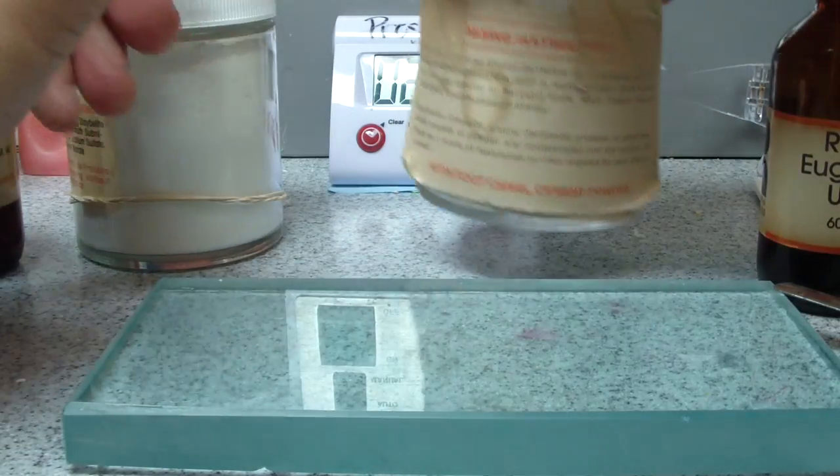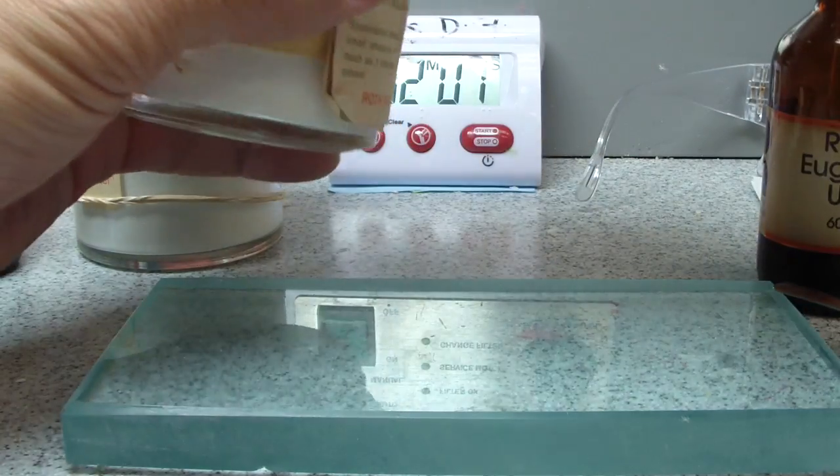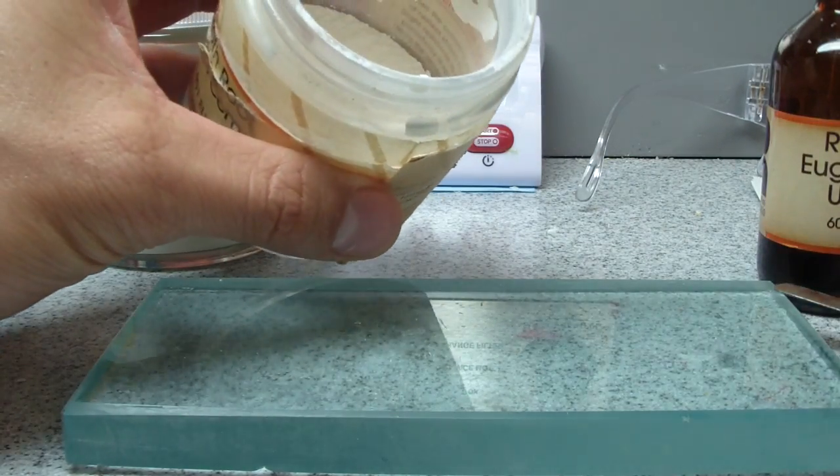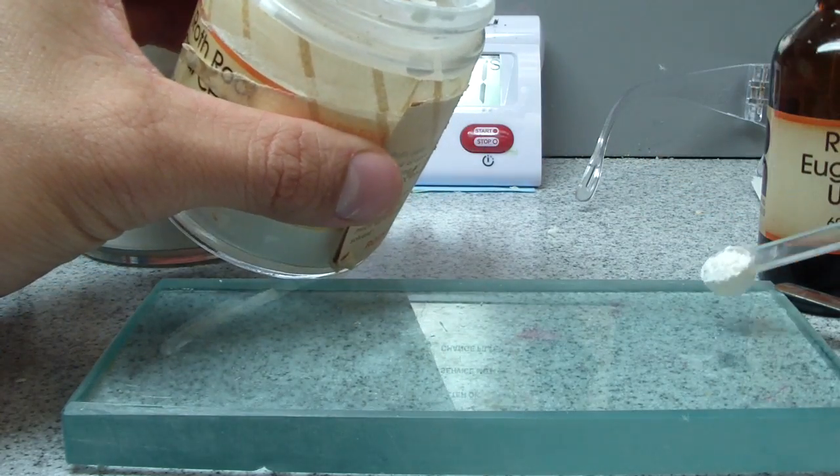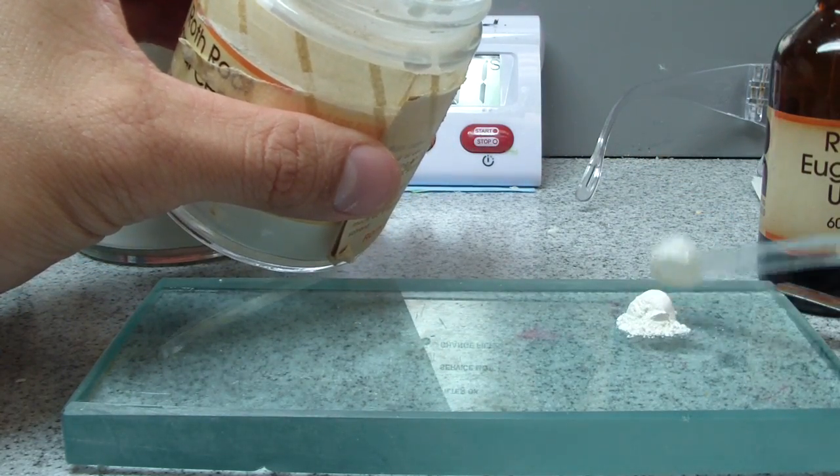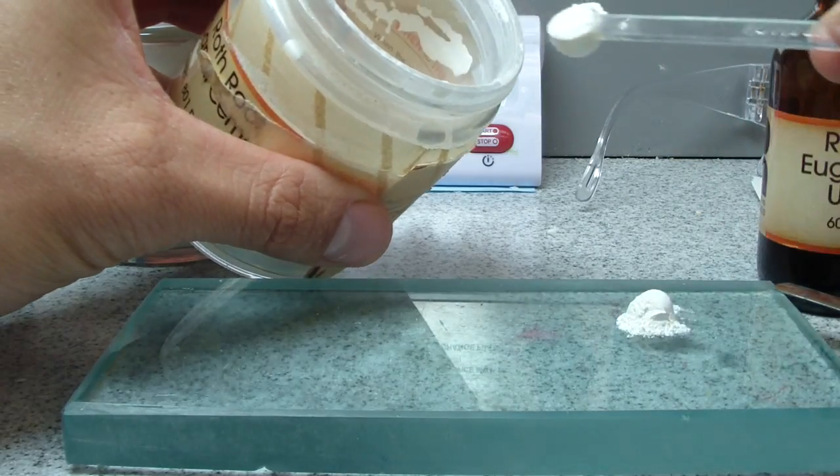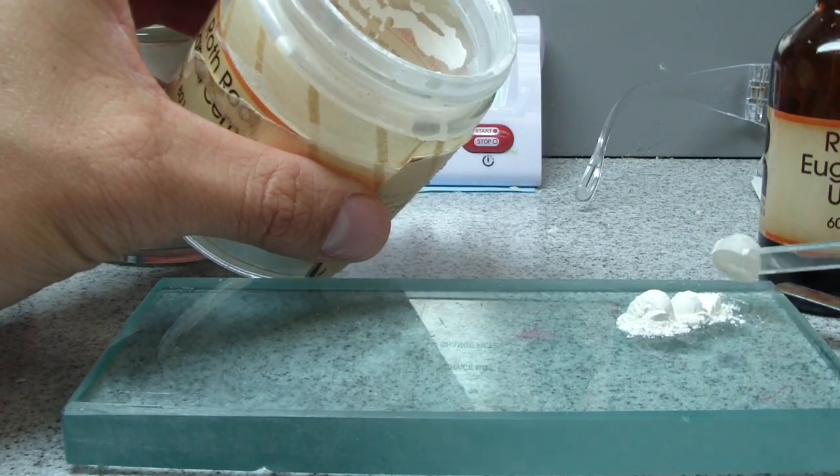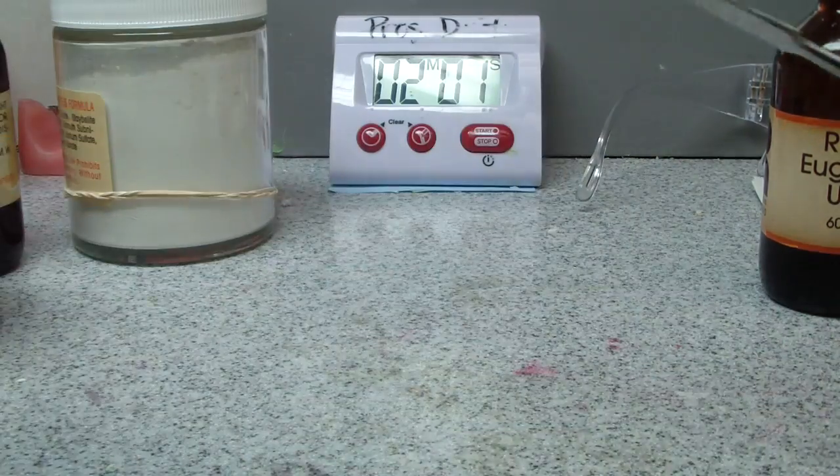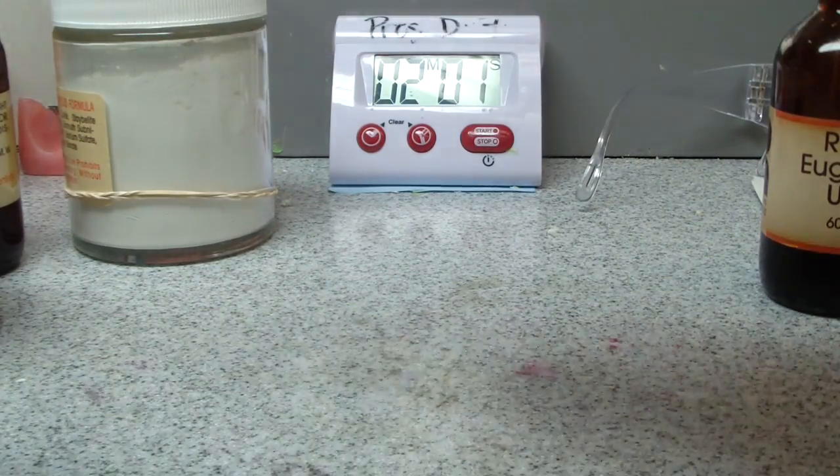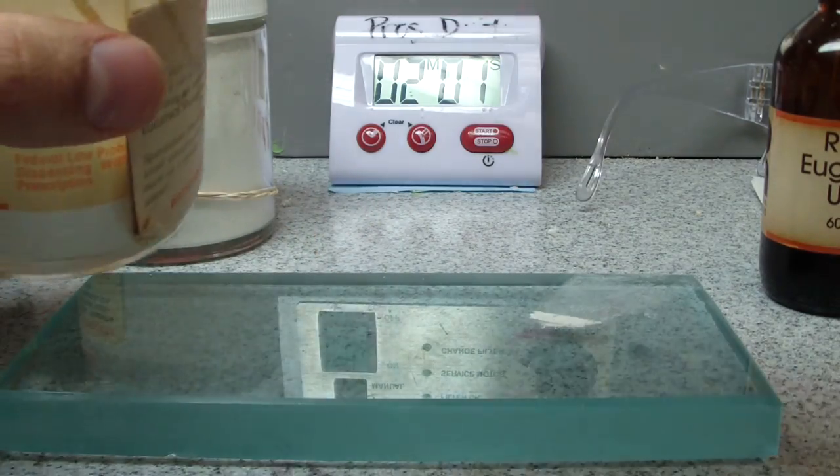Okay, let's take some. Let's do the 801. And because it's not based on scoops of powder, I'm just going to take some. We'll take two anyways. See if it... let's do that one-to-one for our little tabletop experiment.